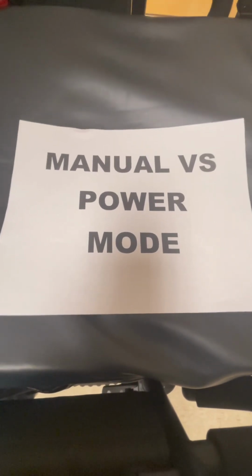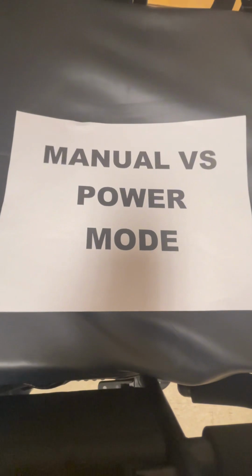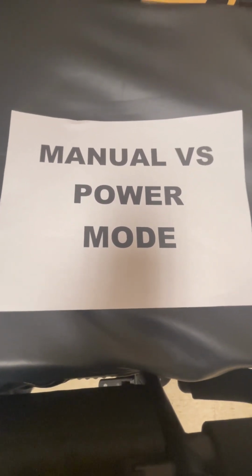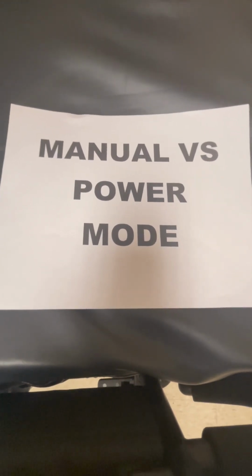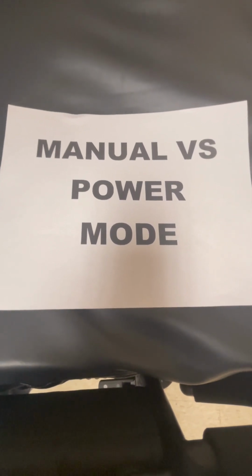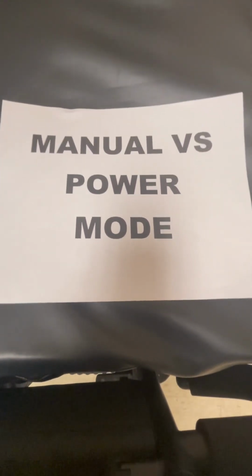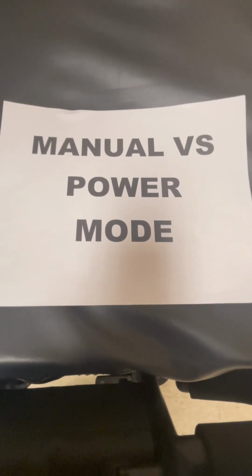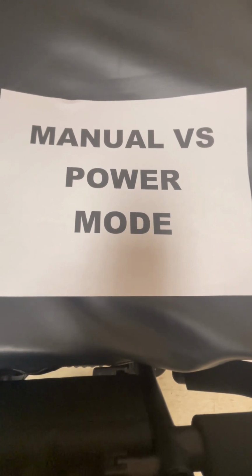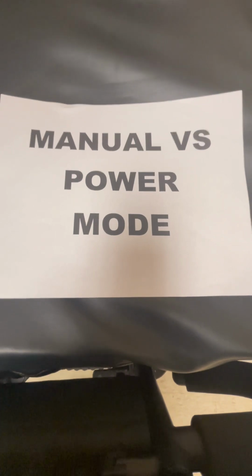You may want to utilize a manual mode on this power wheelchair if the battery has died or the chair is malfunctioning, but you still need to push the patient in the chair to reposition them for a transfer. If you're uncomfortable using the joystick to drive the chair independently for a patient and you're more comfortable manually pushing them in the chair, or if you want the patient to be able to independently tilt their chair for pressure relief and repositioning when they're alone in the room, but you don't want to allow them the ability to drive the chair with the joystick if there's not a caregiver or staff present.